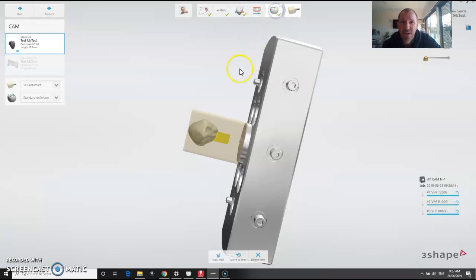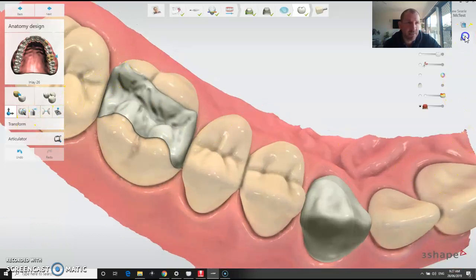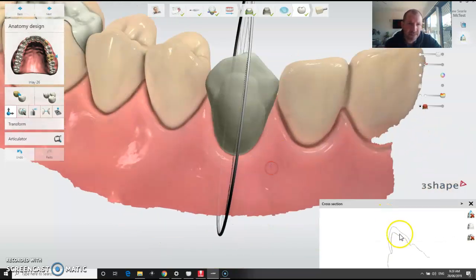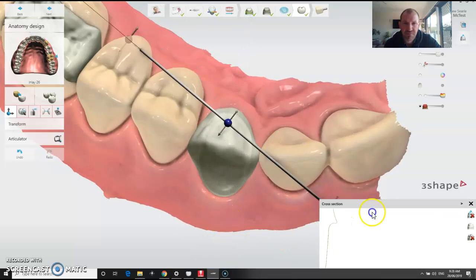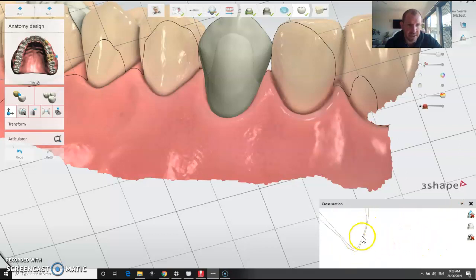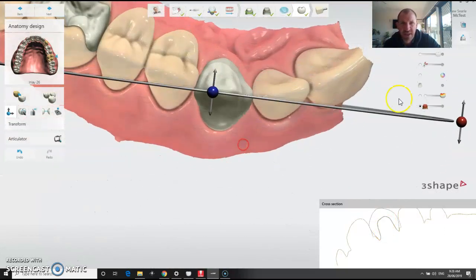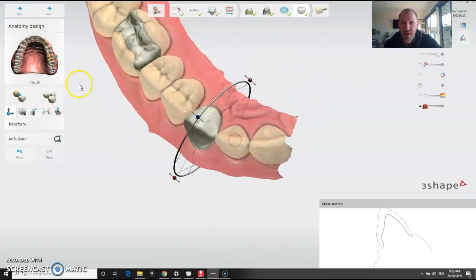I just wanted to quickly show you — because this is what I was speaking to you about — the margins. Using the slice tool: that one's not so bad, you can see the margin. They've just got a little bit of a buffer on the margin area, and that is literally just for milling protection, so it kind of protects the crown from getting milled out too thin. There's your margin contact with just a little bit of a buffer on the outside — it's not the end of the world. If you did want to polish it a little bit it's going to disappear, but everyone using it is pretty much just sending the crowns as they are. That's our particular workflow within Design Studio.